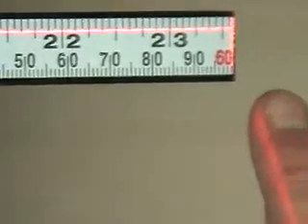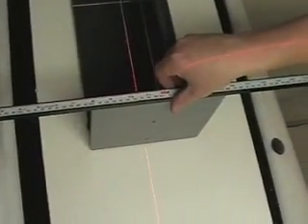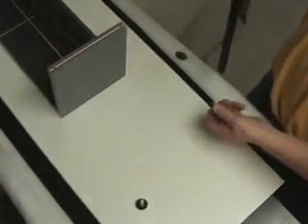At the end, you just need to get it to the edge of the ruler. Once that's done on both sides, you just tell it to go back to zero. Once it goes back to zero, you need to save what you did — press the save button on the pendant. Then go on to the Z axis; it doesn't matter which one you choose first. We're going with Z2 in this case.